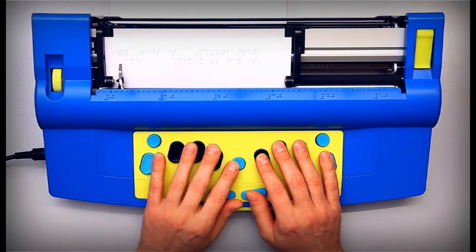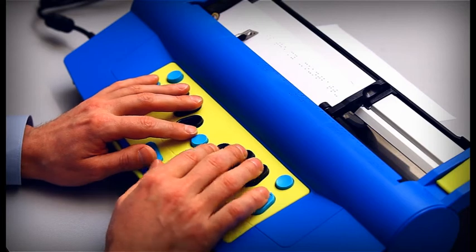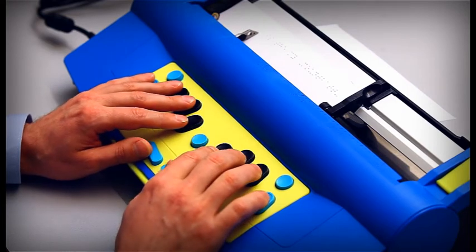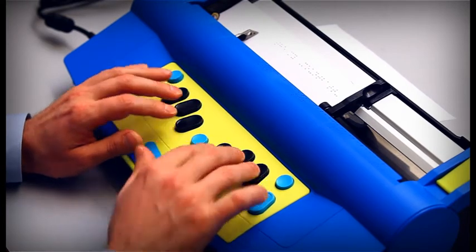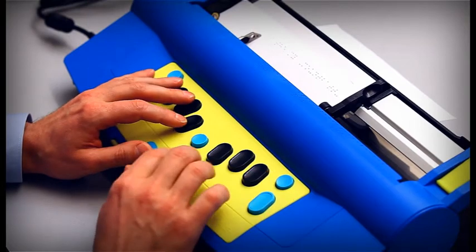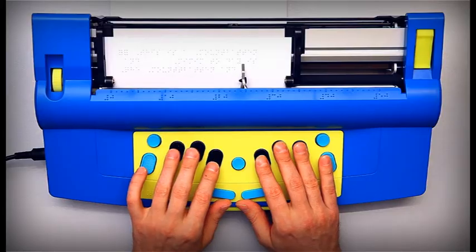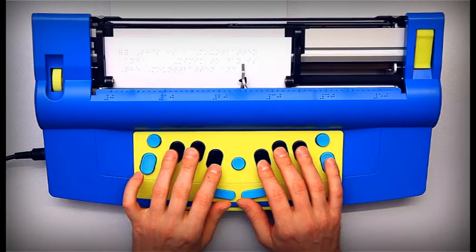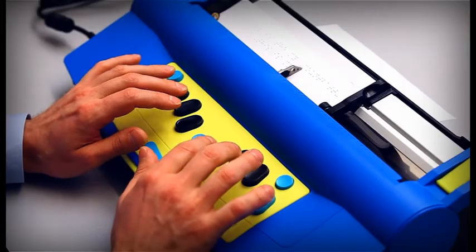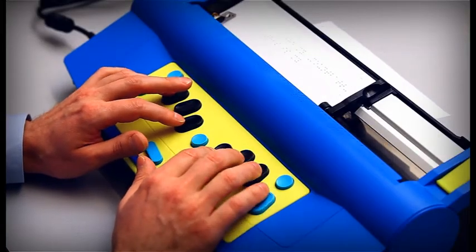When you turn the word wrap command on by pressing Command WW, your words will not be embossed until space is pressed. If the word cannot fit on the line, it is moved to the beginning of the next line.